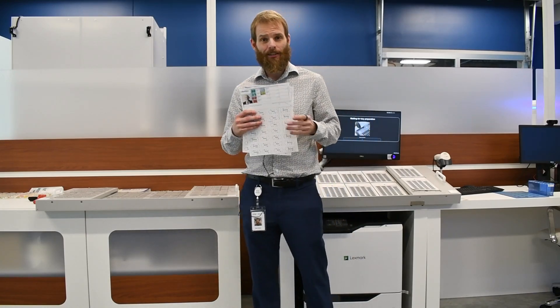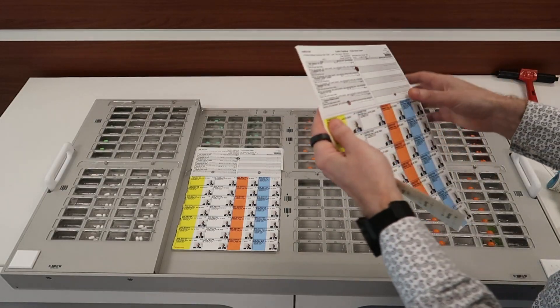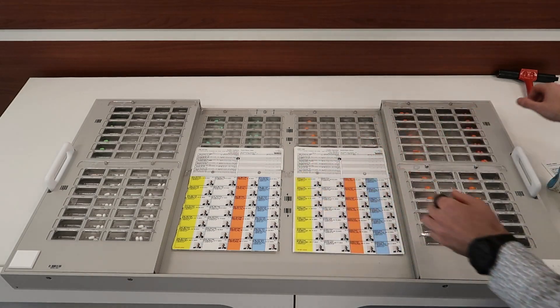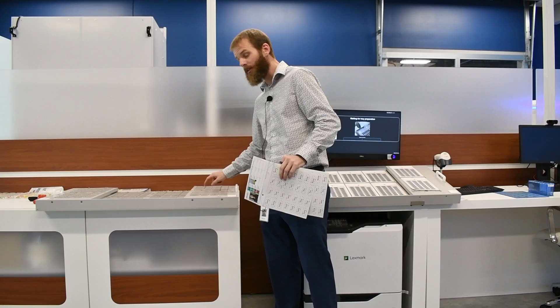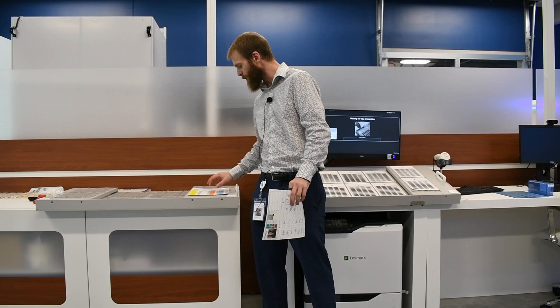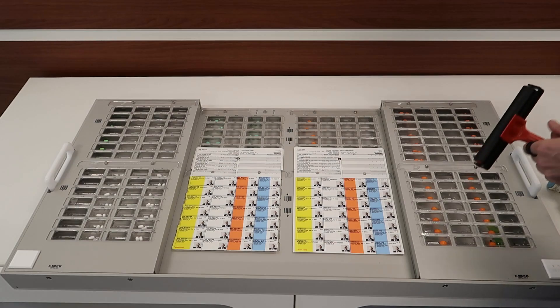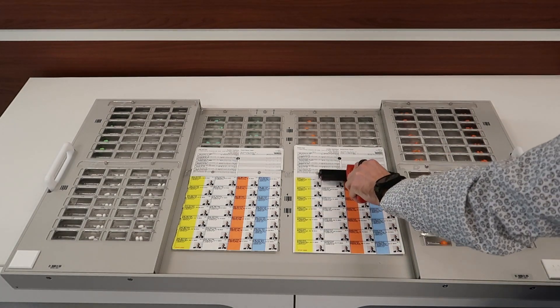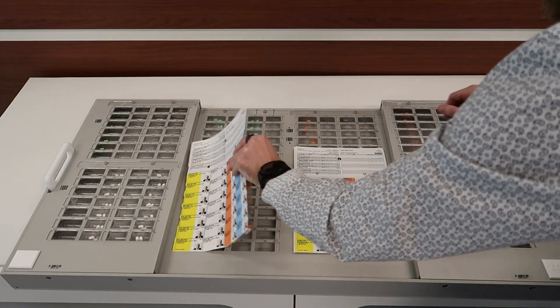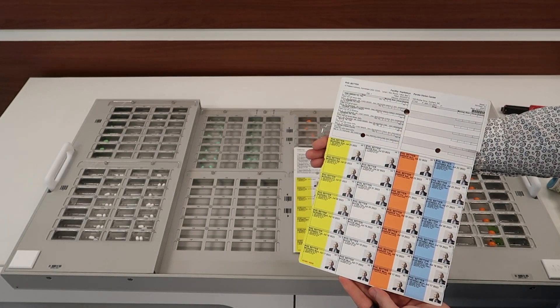We use a cold press seal with our system. The technician will peel off the non-sticky parts of the label to adhere it to the actual blister card. Most of these labels have holes in them, and we have little clips on the tray that those holes line up to. After peeling the label off, the staff lines up the holes to align the label on the card, then uses the roller to actually seal it. The technician will seal the card with the roller, resulting in a completed filled blister card ready to send out to the appropriate patient.